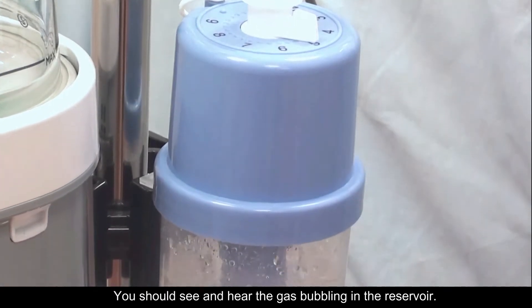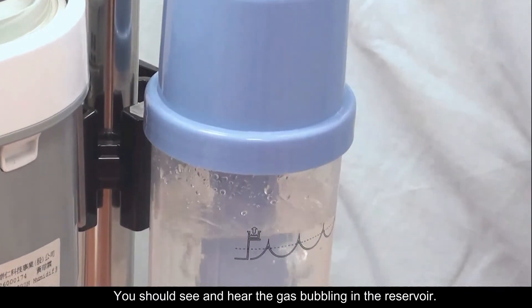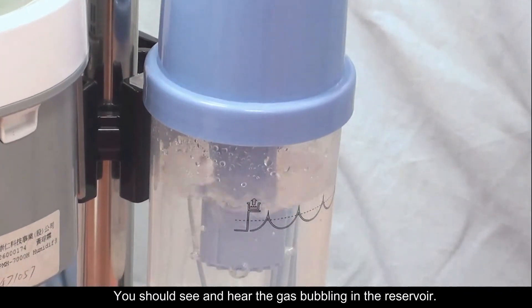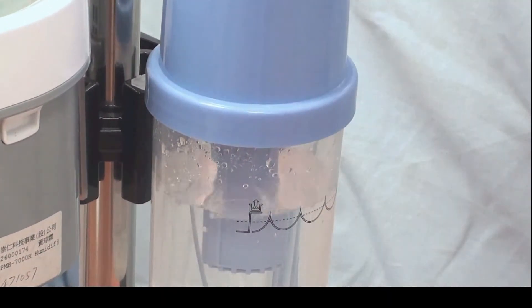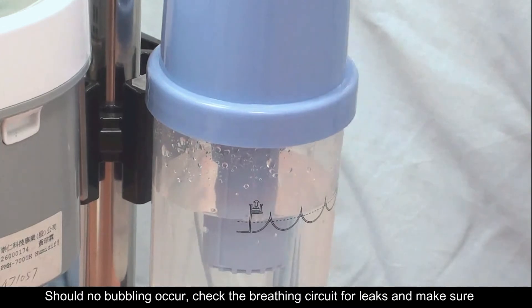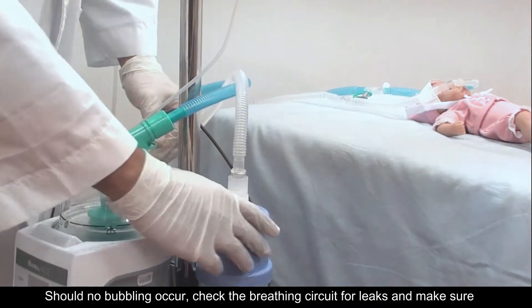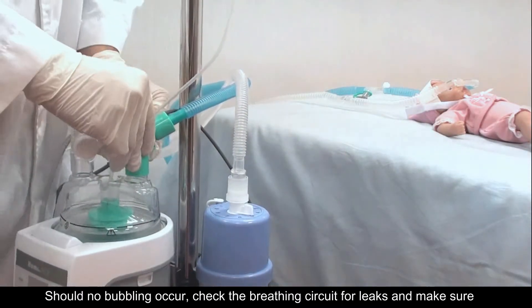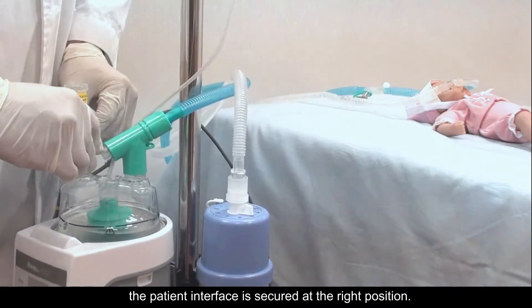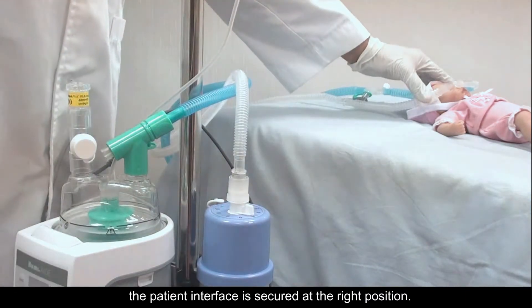You should see and hear the gas bubbling in the reservoir. Should no bubbling occur, check the breathing circuit for leaks and make sure the patient interface is secured at the right position.